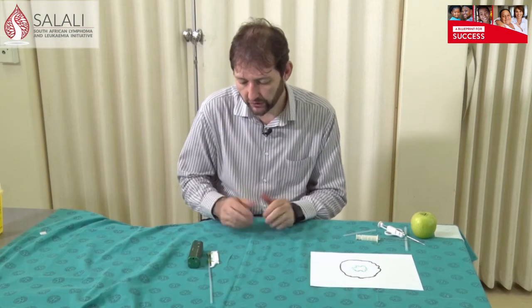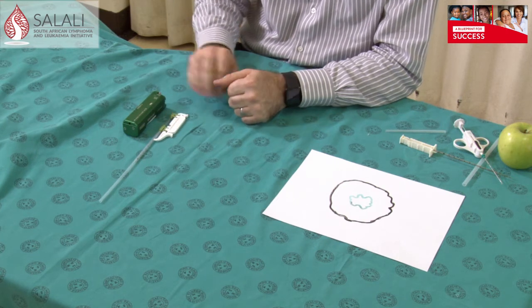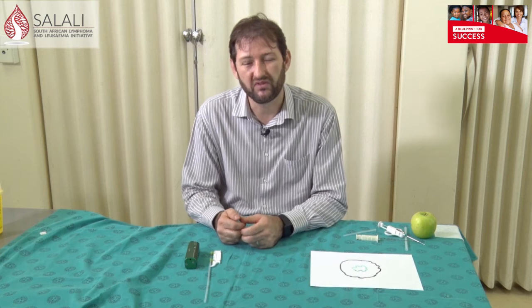The last is an automatic needle biopsy system. You get different ones of these. This is an example of a reusable hand piece with disposable needles. You also get a system that is completely disposable — the whole unit is disposable. The advantage of the completely disposable system is that you have less chance of cross-contamination between patients. The reusable hand piece needs to be cleaned thoroughly after use. The disadvantage of the fully disposable system is mainly cost — they are the most expensive needles available, which limits their use.